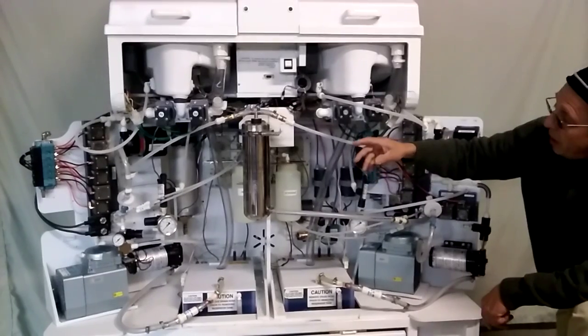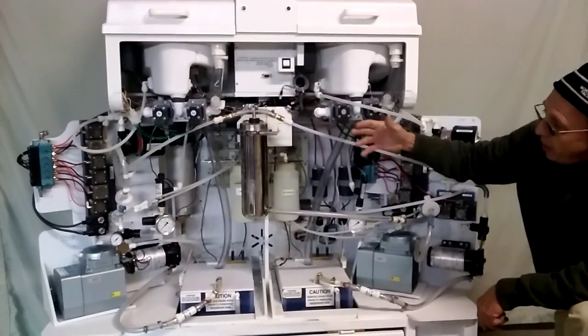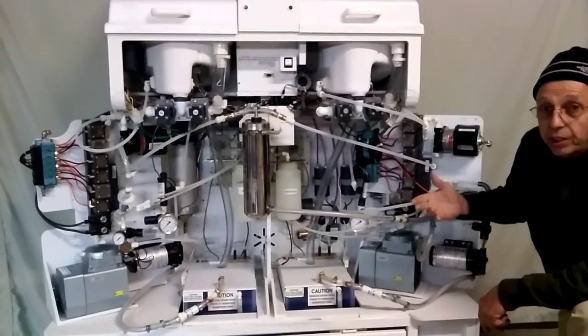What this does is it allows you to look at everything while you're learning about it, which we believe enhances the learning experience.